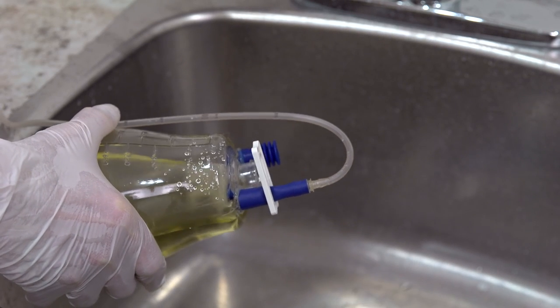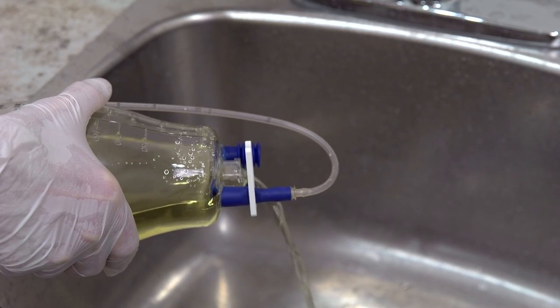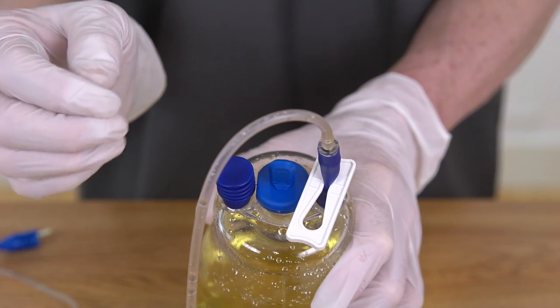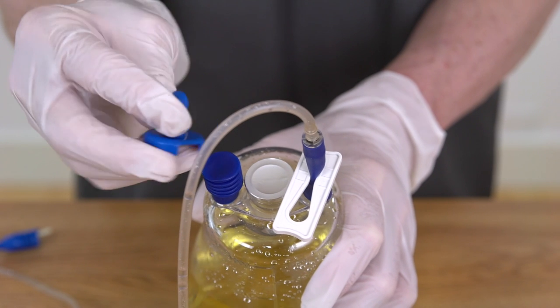Alternatively, the fluid may be drained in a toilet or sink and the bottle then placed in the trash. To drain the bottle, remove the blue plastic cap over the drain hole.